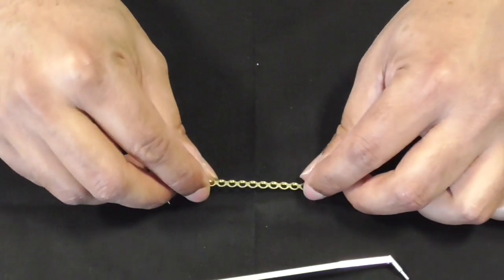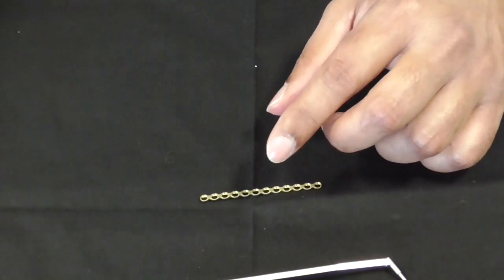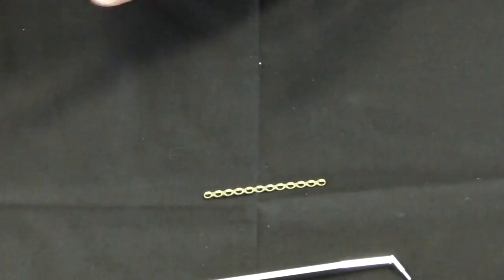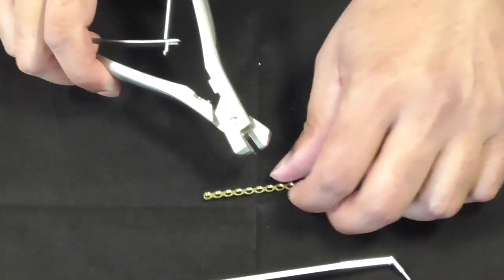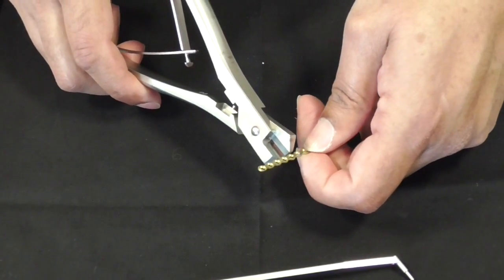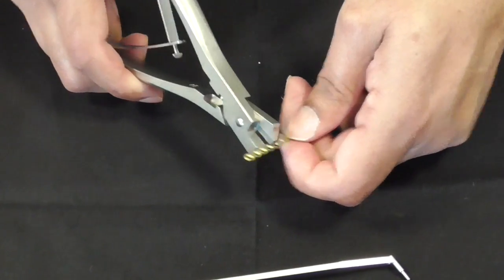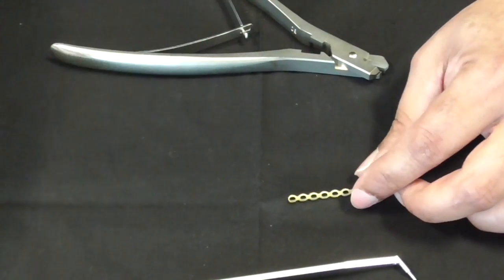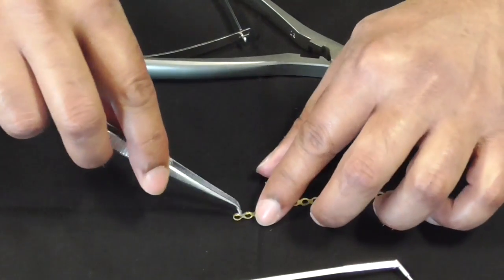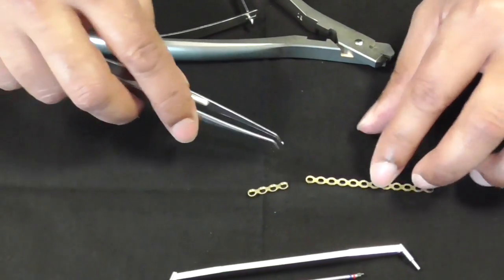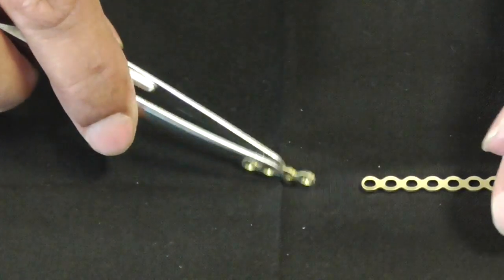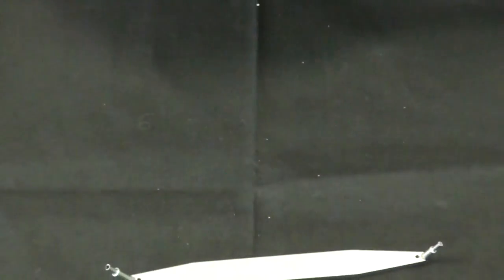You've got your plate and you want to say, well this plate is too long. You can use a plate cutter. Essentially put the plate in here, decide how long you want it, and you cut it. Here's a little example of a plate we've cut earlier, much like Blue Peter. That's been cut, we wanted a four hole plate from a long one and you can see that's been cut on the sides.